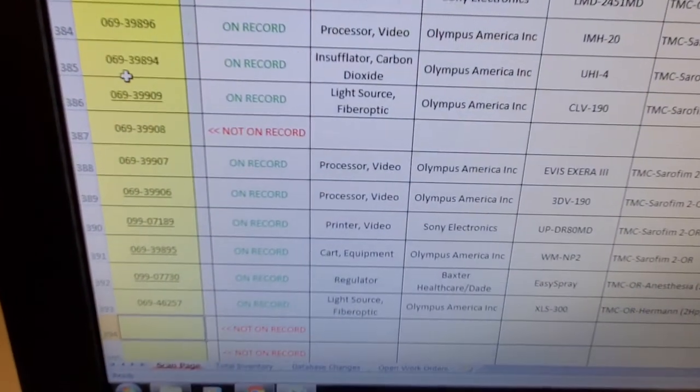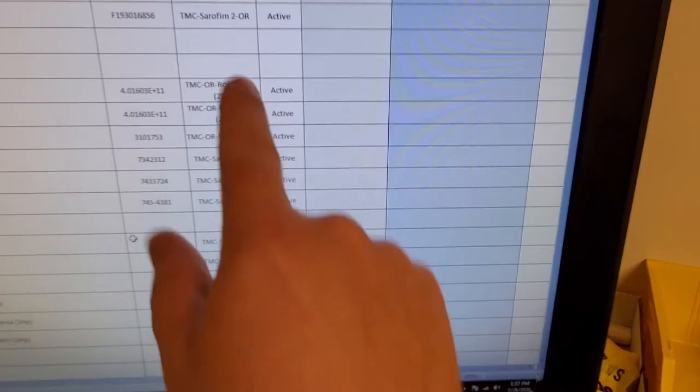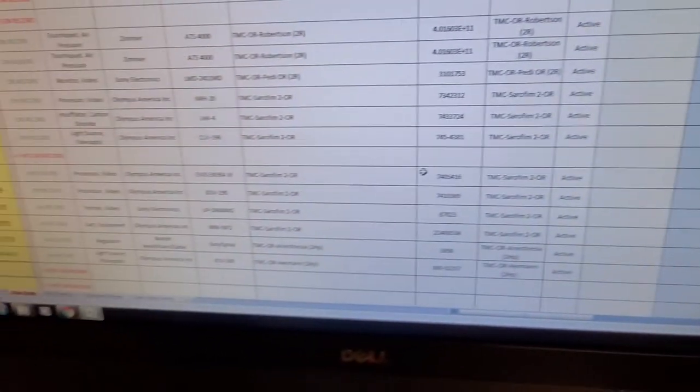We started right over here with the air tourniquet and you can see I have one of these items as non-record right here — so I just have to go through and find item 39908. None of these have open PMs, which is good. Let's say you only have 15 to 30 minutes in an operating room before they turn over to a new patient, or you're going through a mass amount of items like during a pump sweep — you can do scanning to figure out which items have recalls, which have current open work orders, and which ones are not on record, which does happen quite often.